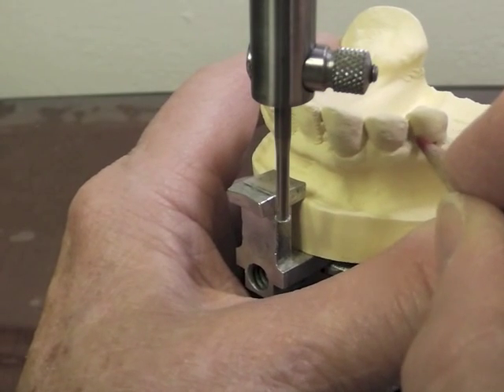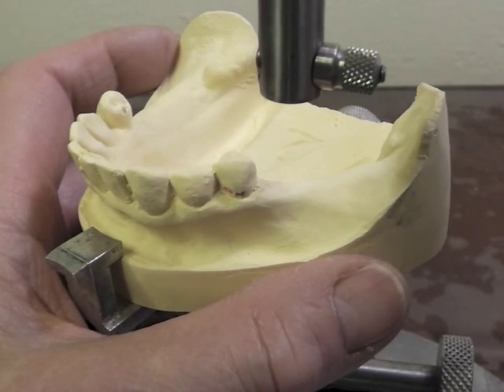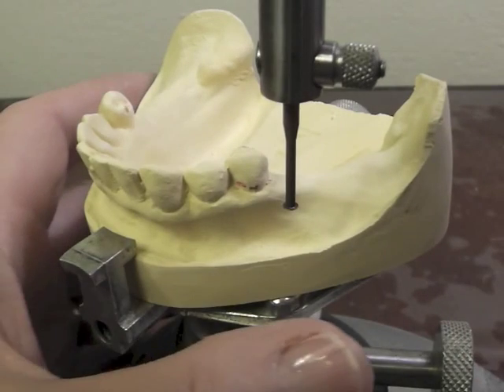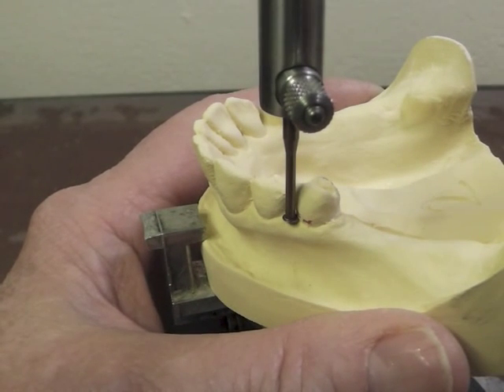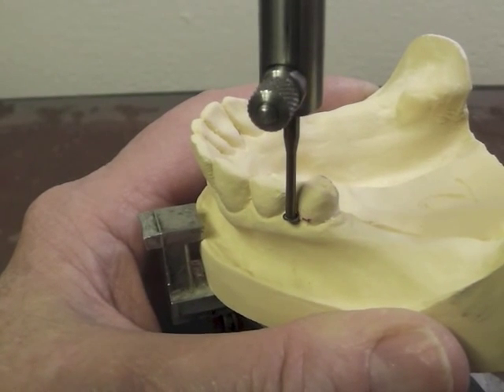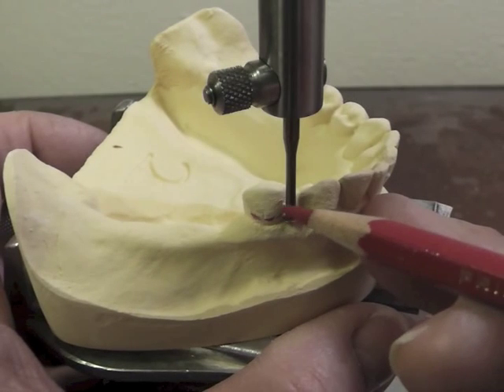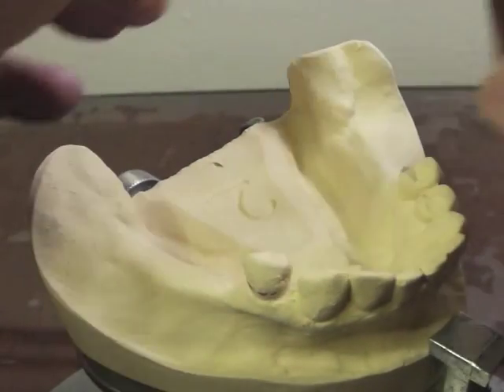I could check to see if I have a 0.02 mesial facial undercut, because that would make my clasping a possibility for a wrought wire. I put in my 0.02 undercut gauge — yours are labeled by one notch for 0.01, two notches for 0.02, and three notches. I cannot get an undercut on the mesial facial where both the vertical aspect of the rod and the little lip are touching. If both are not touching, there isn't a 0.02 undercut. Looking on the other side, I can't get any position where both my vertical rod and the horizontal lip are touching the tooth, so I don't have a 0.02 undercut on the mesial facial of that tooth at all.